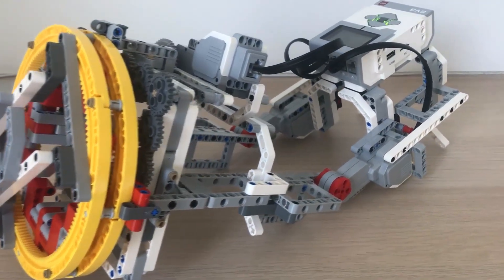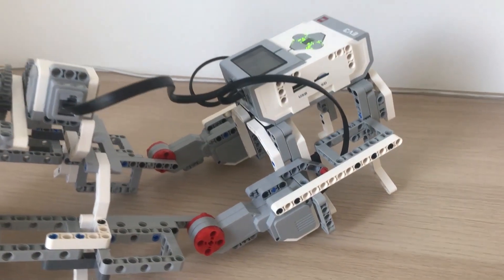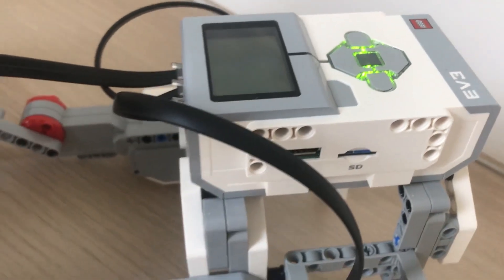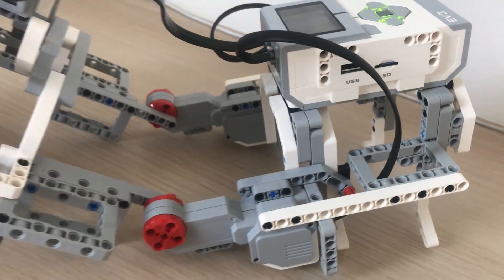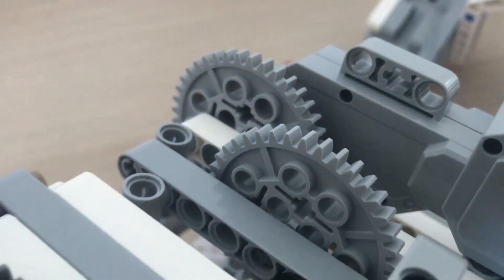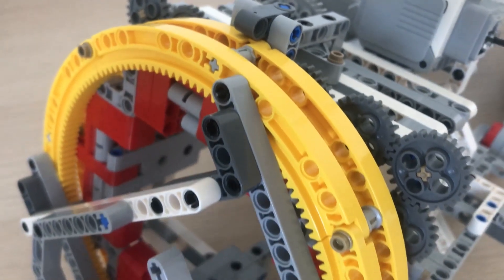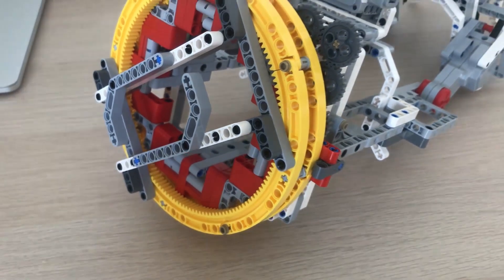Communication with the Unity 3D development platform and the LEGO Mindstorm control unit is done via Bluetooth. The exoskeleton supports two degrees of freedom: one at the elbow joint allowing the elbow to bend, and one at the wrist allowing the wrist to rotate. The wrist is surrounded by a cuff which connects the forearm to the rotating circle.